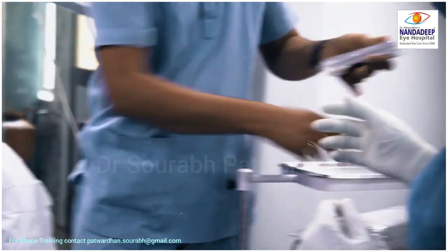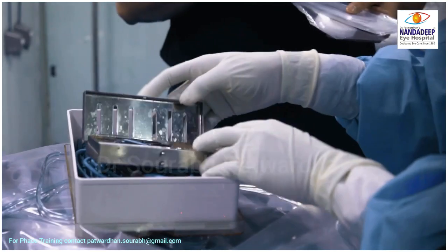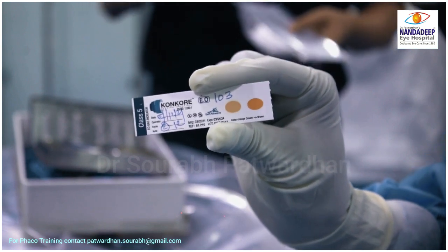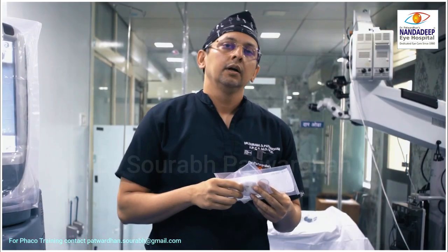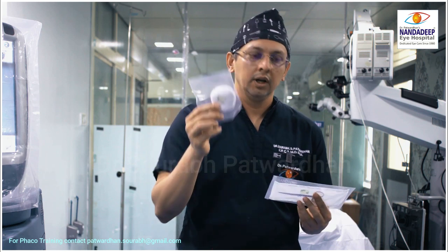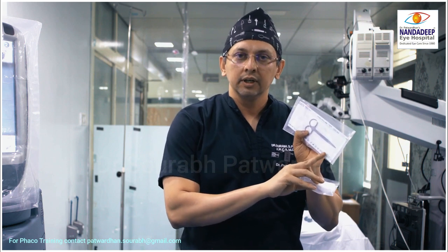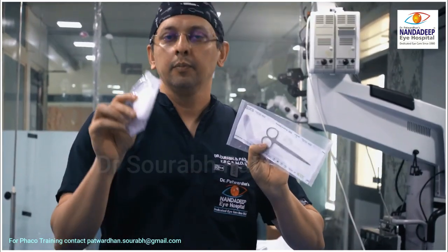For each instrument set to be sterilized, there will be a class one indicator on the outside so we know the surgical load is processed, and a class five indicator inside every instrument set for each patient, ensuring that each set has passed the complete sterilization process. Even for things not used intraocularly — such as scissors for cutting drapes or placing an iPad cover — we apply a class one indicator and use Tyvek pouches with class one indicators, ensuring no unprocessed material is used by mistake.